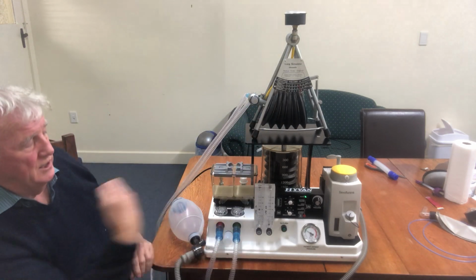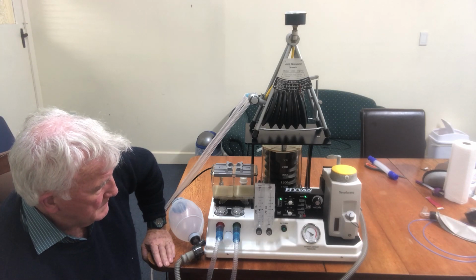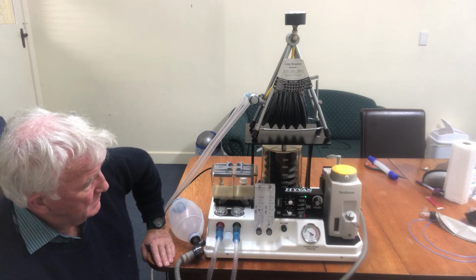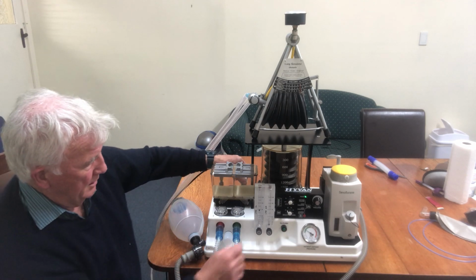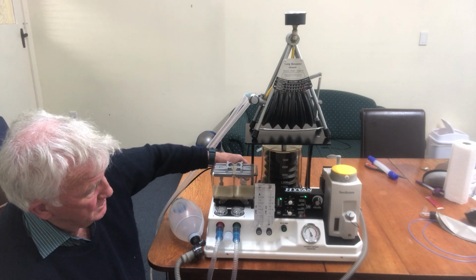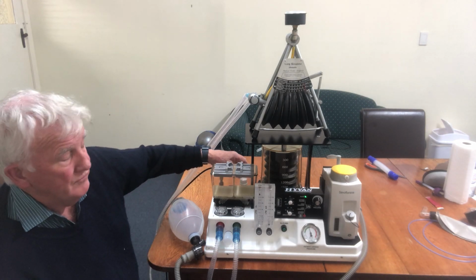So you then go ahead and extubate the patient, and they go into laryngospasm. And probably the best way to manage laryngospasm is with CPAP. You hold the mask on the face, and you may want to dial up pressure. So we can turn up the flow of oxygen, and we just dial up whatever CPAP we've got. I've got about 25 centimetres of water, up to 30, whatever you want.